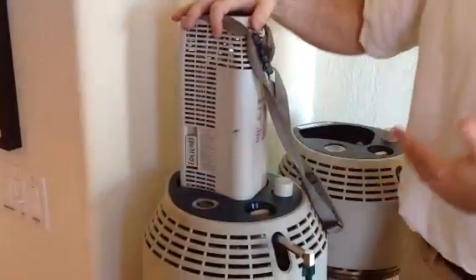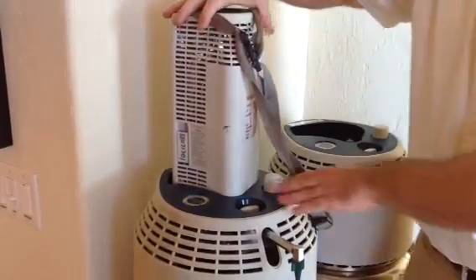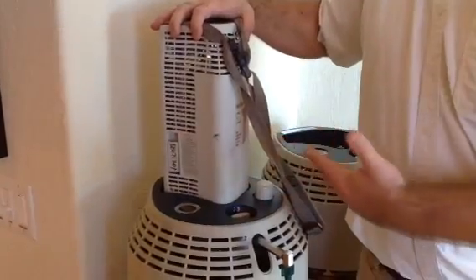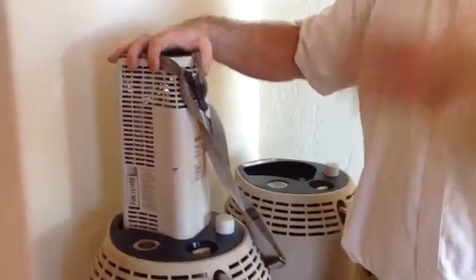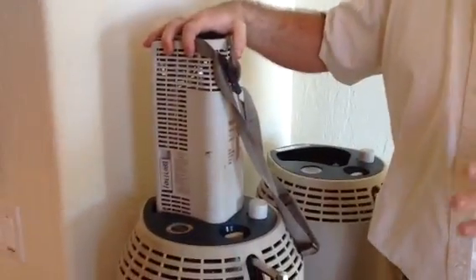You're going to have to let that go for about one minute — it could take longer, it could go quicker. When you finish, that gaseous sound is going to sound more like an escaping liquid. You'll also see white plumes as liquid oxygen is coming out — it looks very cloudy, very much like the clouds in the sky.